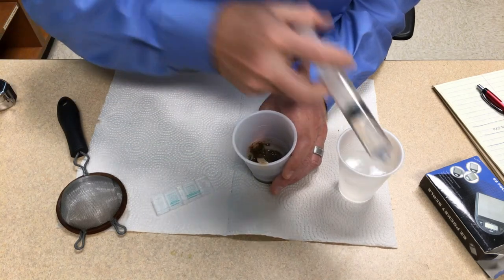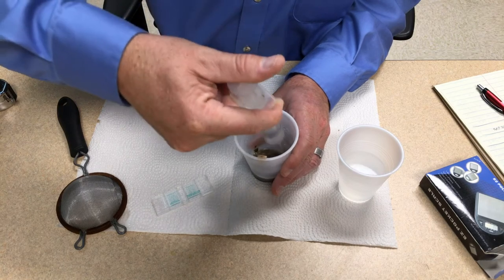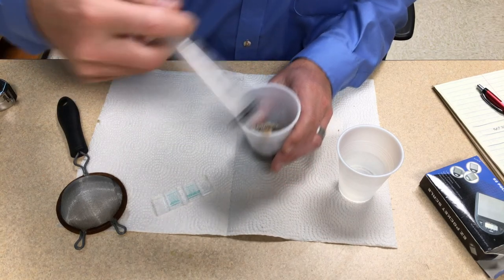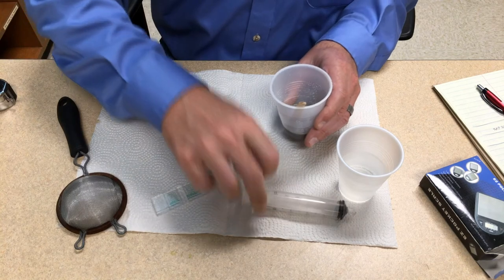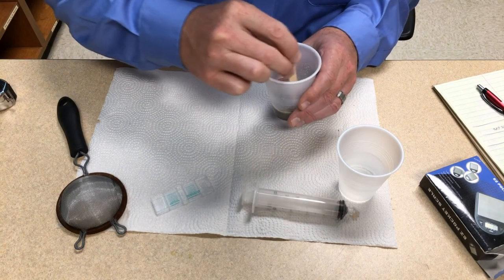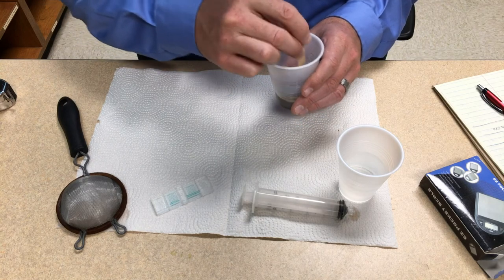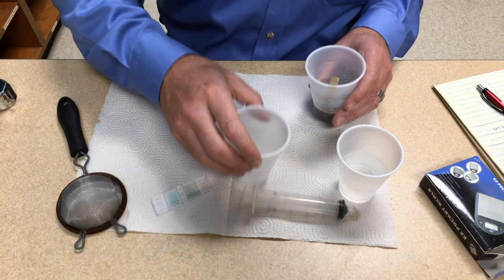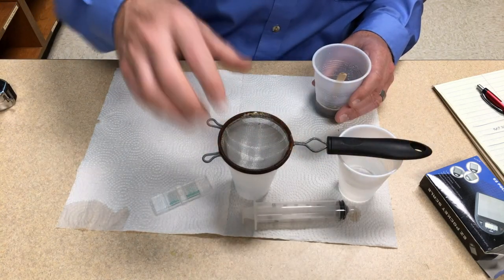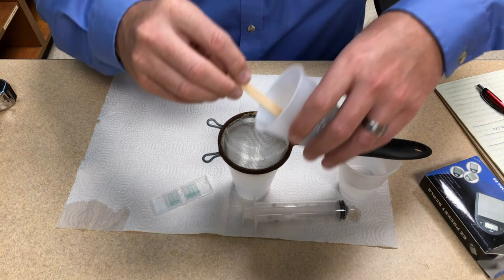Once you have all the pellets broken up, you'll add the rest of your flotation solution, which again is a total of 26 milliliters. Make sure it's stirred in very well. Then you'll use a clean cup, put the tea strainer in place, and pour the solution through the tea strainer and allow it to drain.